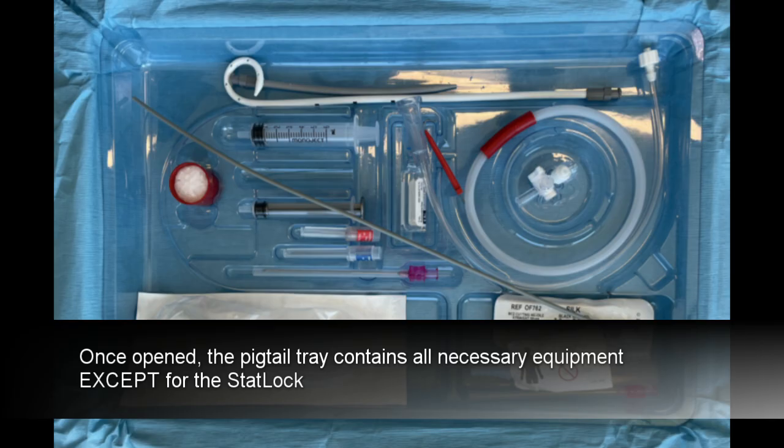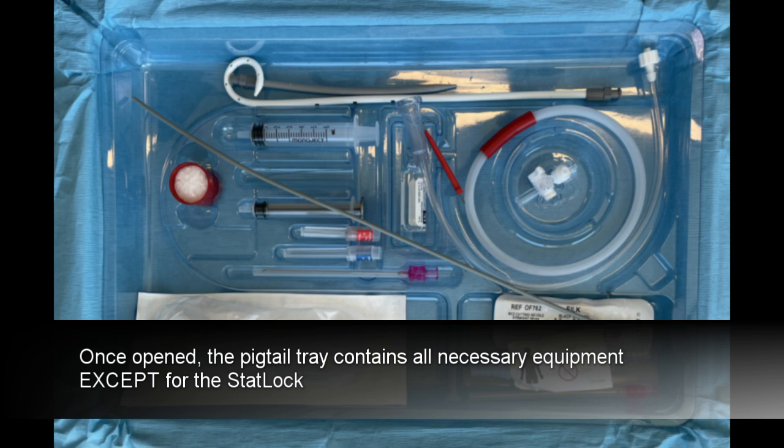Once opened, the pigtail tray contains all of the necessary equipment you'll need to perform the procedure, except for the statlock.